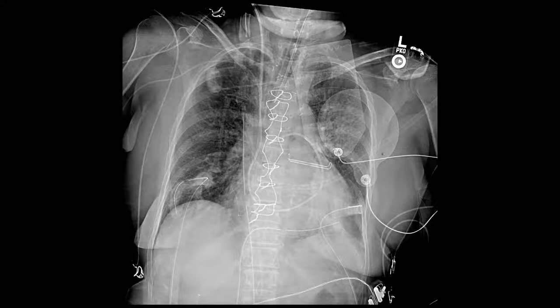When I get a chest x-ray like this, I usually start with the endotracheal tube. Here we have an endotracheal tube coming down — you can see it coming all the way down and stopping about there. The carina is here; this is where the trachea bifurcates. You want the endotracheal tube at least two centimeters away from the carina — three or four is better. I'd just do a simple measurement from here to here and make sure it's at least two centimeters.